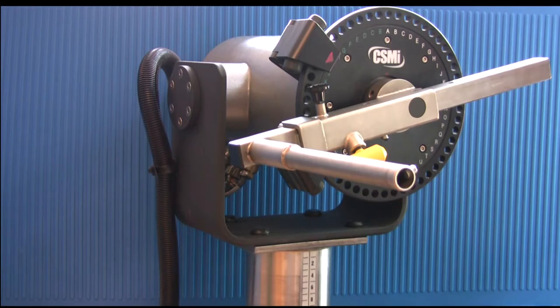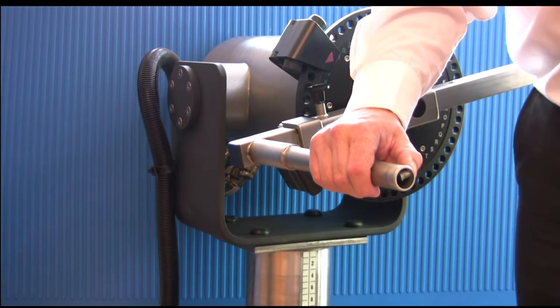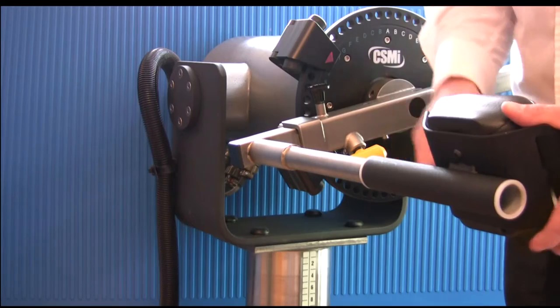To attach the knee hip pad to the knee hip adapter, press the retaining button on the knee hip adapter, then slide the pad into position.